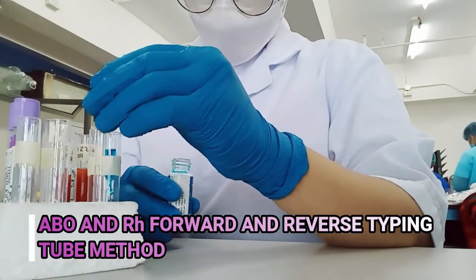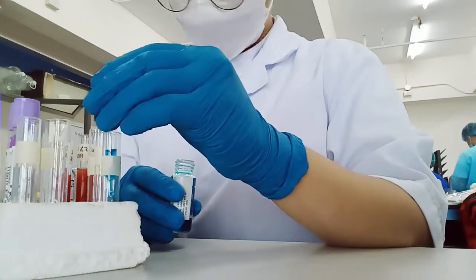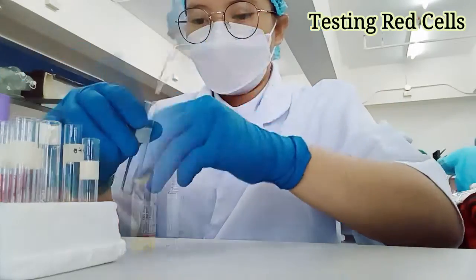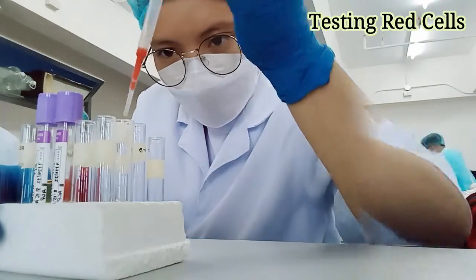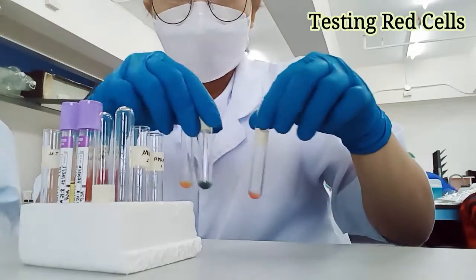ABO and RH forward and reverse typing tube method. Place 1 drop of anti-A, anti-B, and anti-D on separate test tubes. Then add 1 drop of 5% red cell suspension on each tube. Then mix.